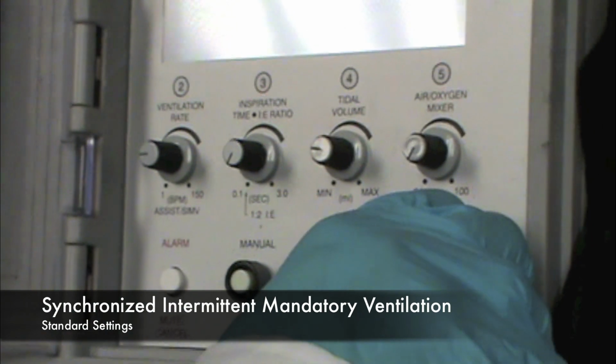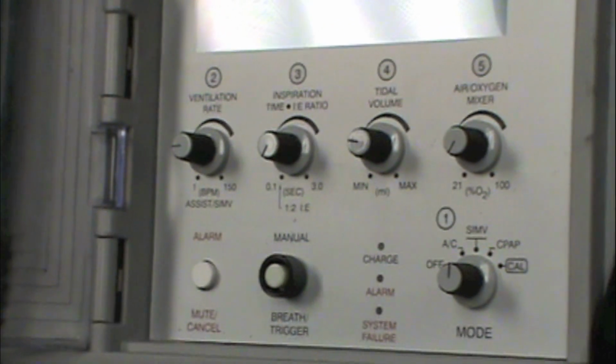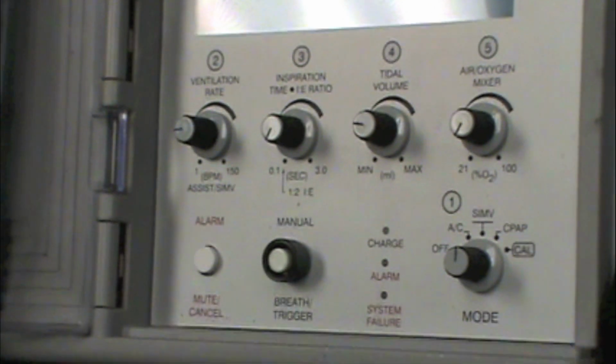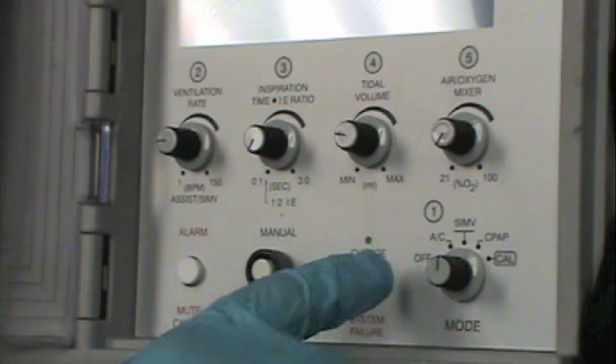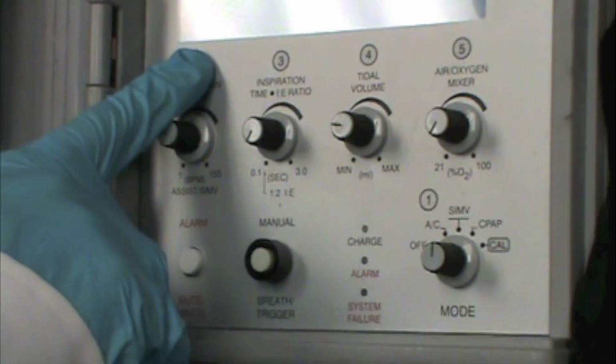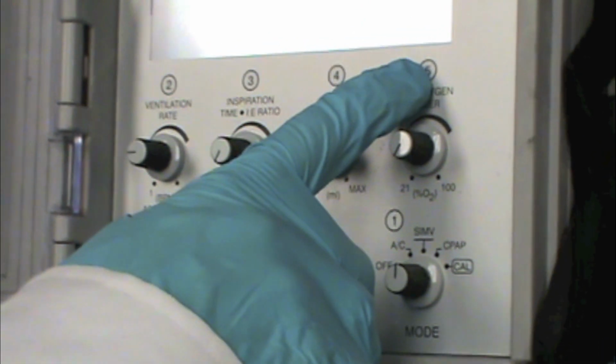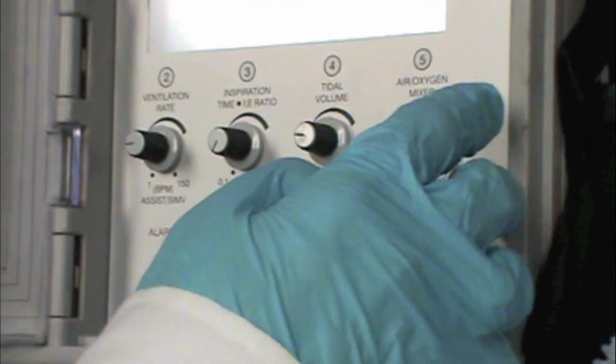So the next mode that we could go to is called SIMV. So this is called synchronous, intermittent, mechanical, or mandatory ventilation. And so this is similar to AC in that it has a set rate, a set tidal volume, a set FiO2, so how much oxygen we're giving to the patient.